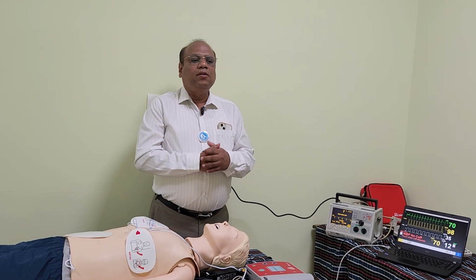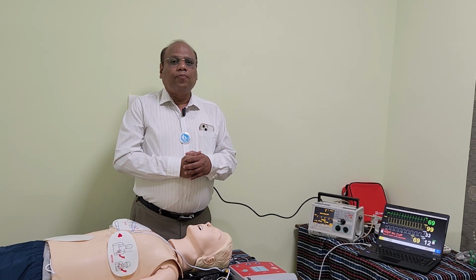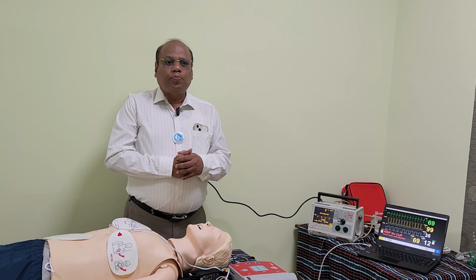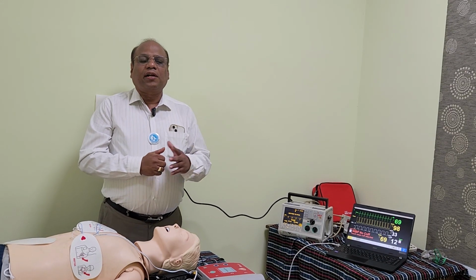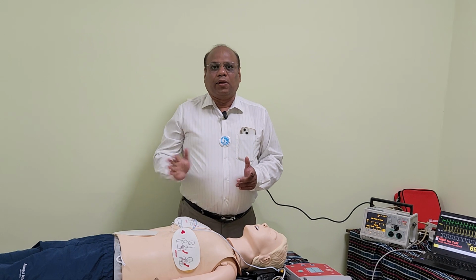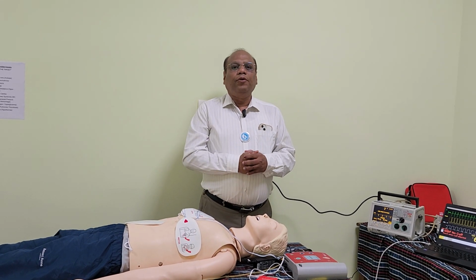Then the student should be asked what is the importance of checking the peripheral pulse. Then the student should be able to answer that at the end we should confirm that the number of pacing spikes we are giving to the heart is converted into complete electrical capture, and the same number of electrical captures is producing an effective contraction to result in a peripheral pulse. Then the student should be asked what is the next step you are going to do.